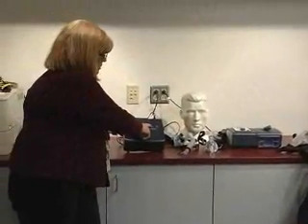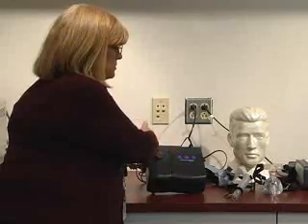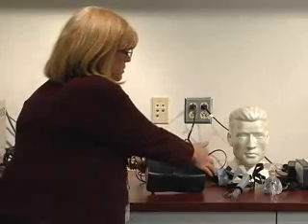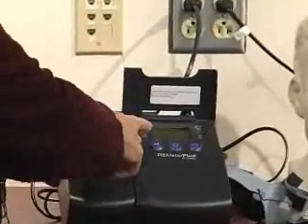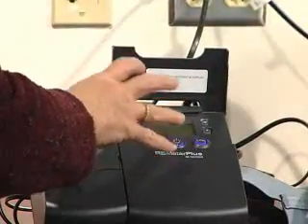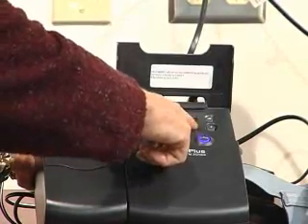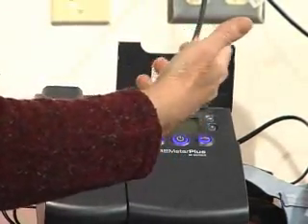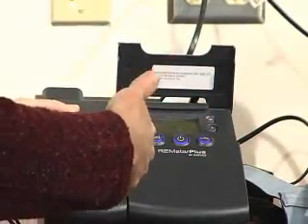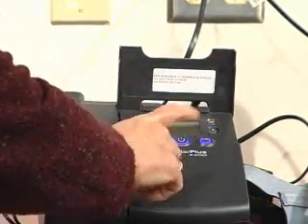How do you turn on the CPAP or BiPAP machine? With the M Series Respironics, you want to use the center button, which is the universal start-stop button — that turns the unit on. You'll hear a beep and airflow comes out the back. To view the digital display underneath, lift on the right side, and right there is the patient's set pressure. If the patient feels the pressure is too much, this is called their ramp button — push the ramp button. The pressure will go down to the lower setting of 4, then over a 20-minute period gradually work up to the set pressure of 8. It will never go higher than their set pressure or lower than the ramp set pressure. Ramp is for their comfort — encourage ramp whenever they feel pressure is too much.